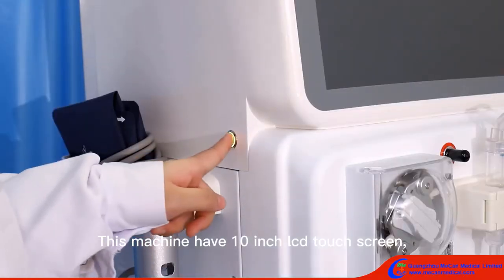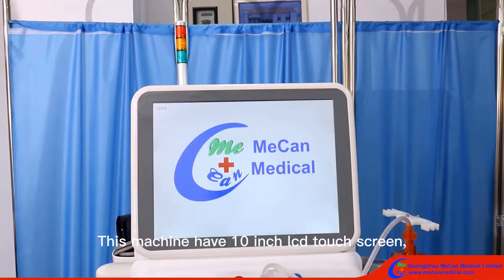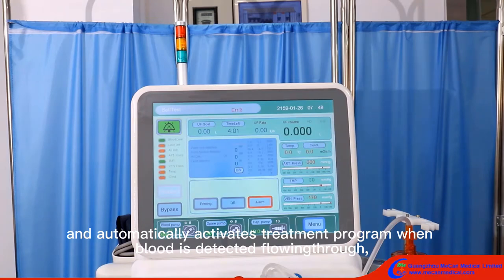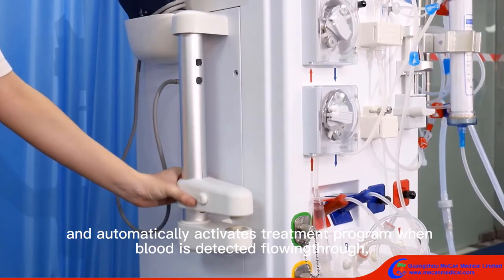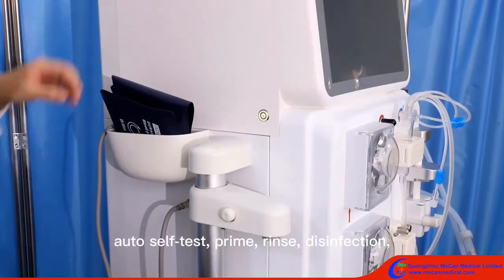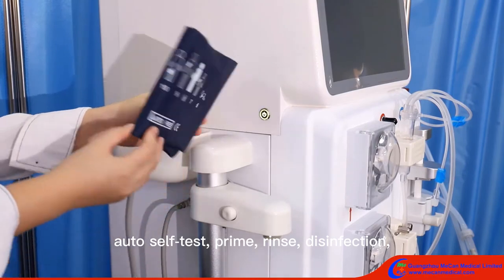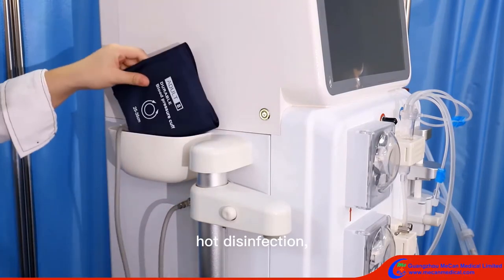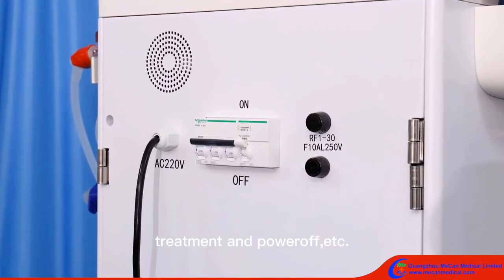This machine has a 10-inch LCD touchscreen and automatically activates the treatment program when blood is detected flowing through. It supports auto self-test, prime, rinse, disinfection, hot disinfection, treatment, and power off, etc.